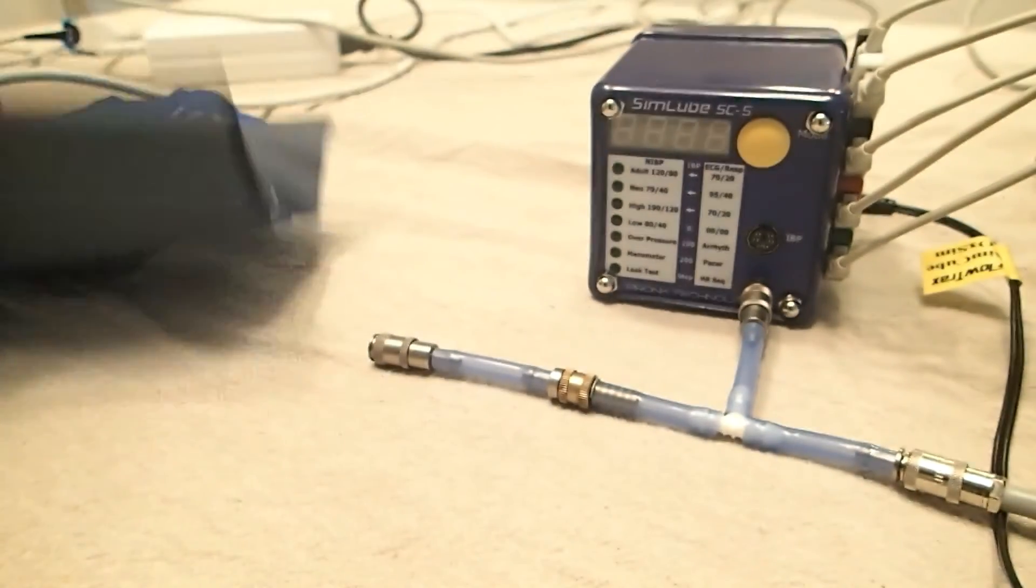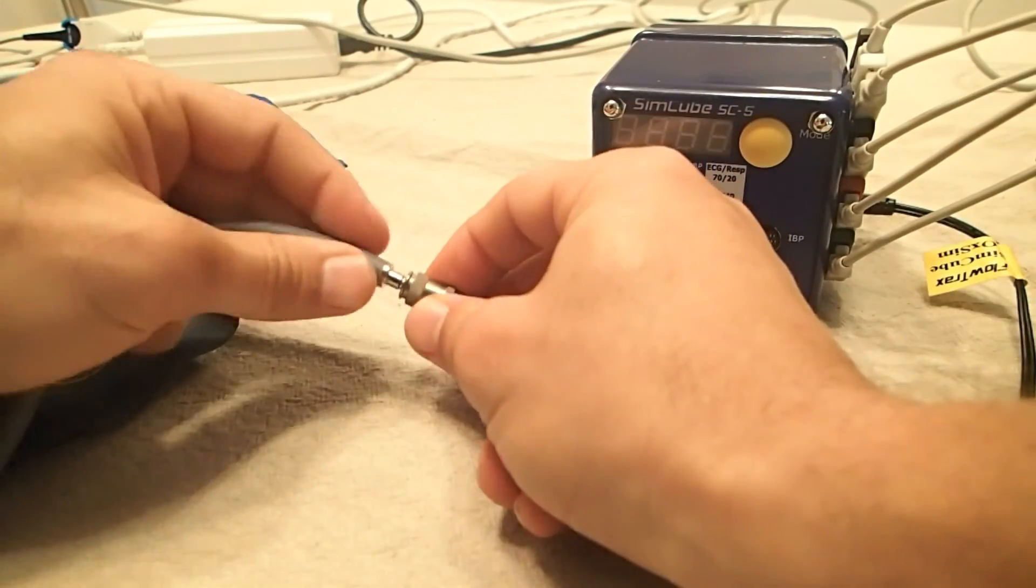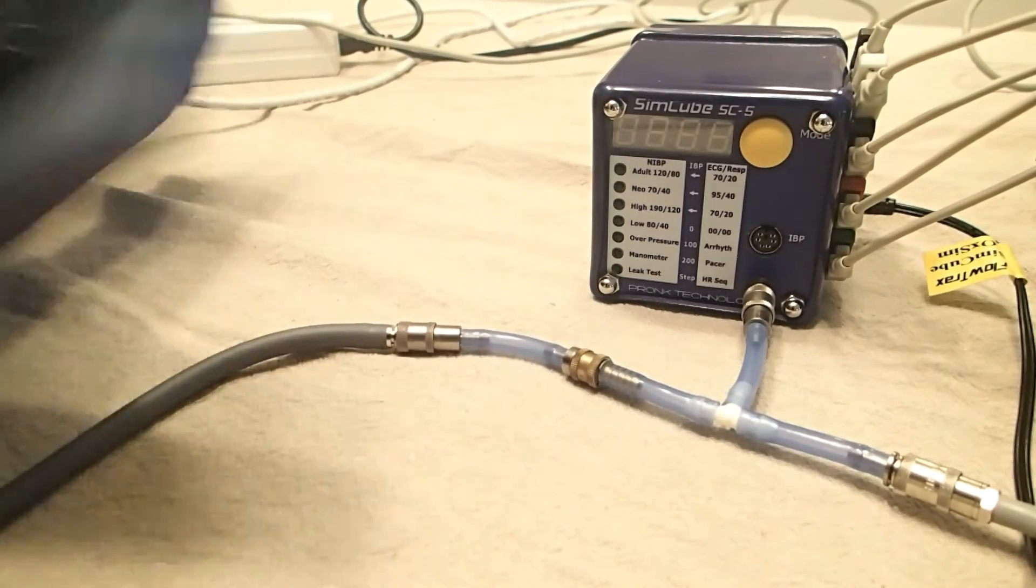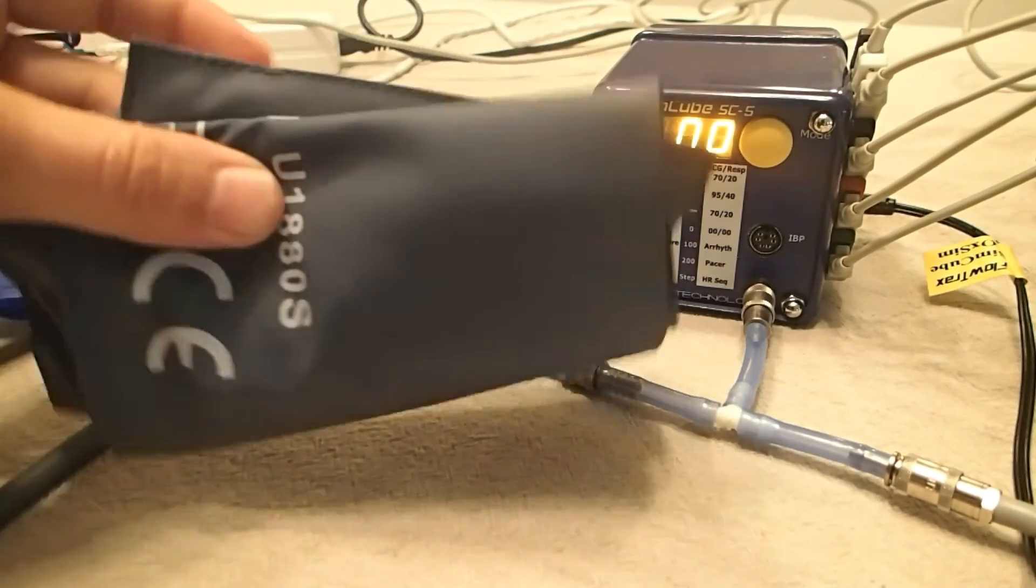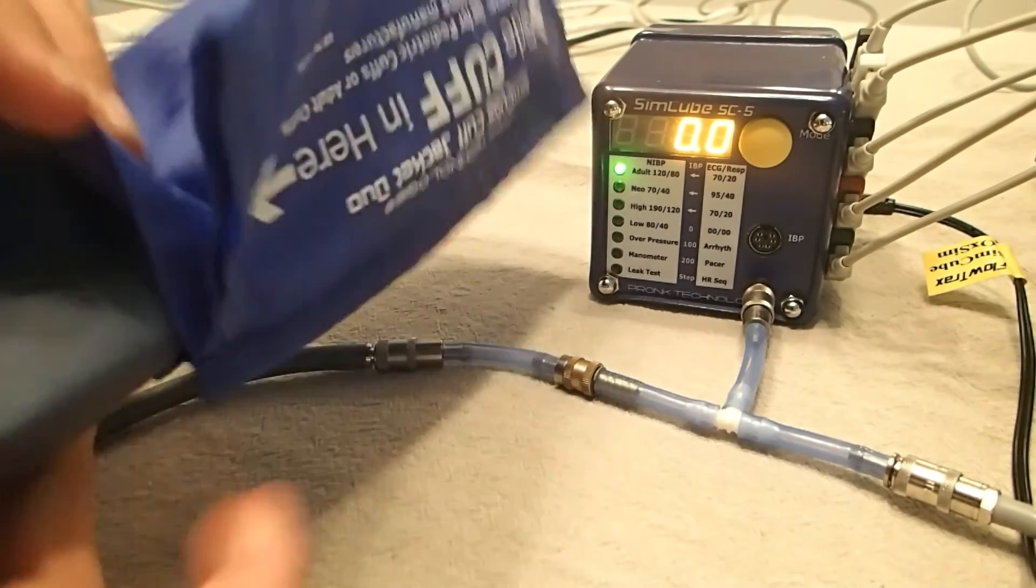Make sure that's connected. And then next we want to take the cuff and connect it to this side. Once we've done that, we want to make sure the cuff slides into this jacket.